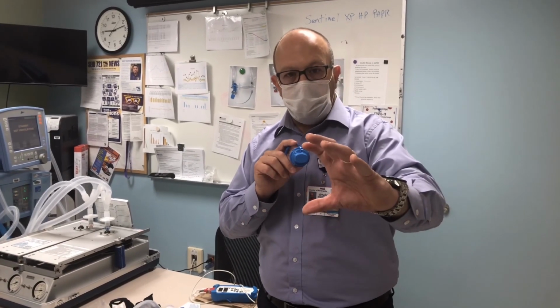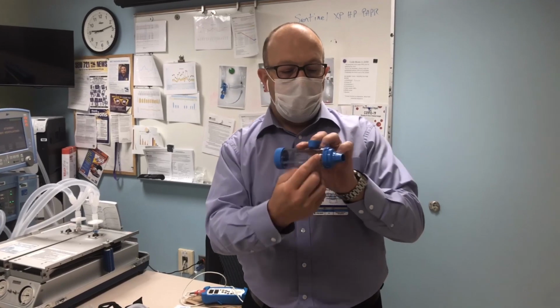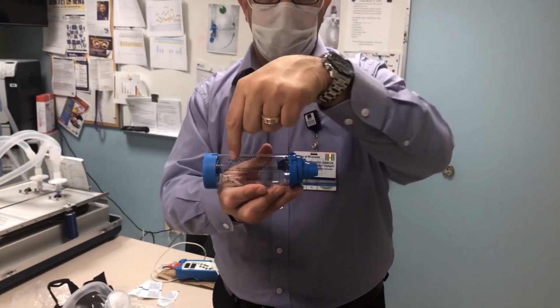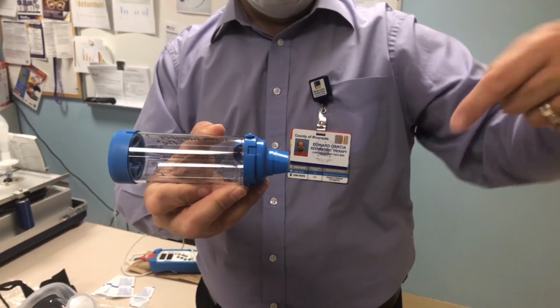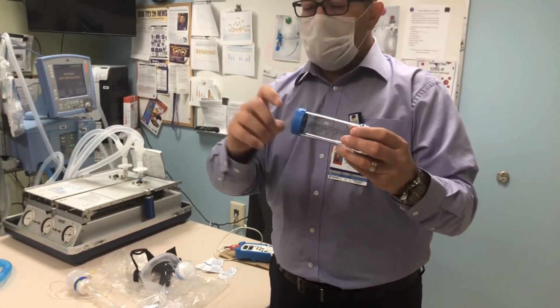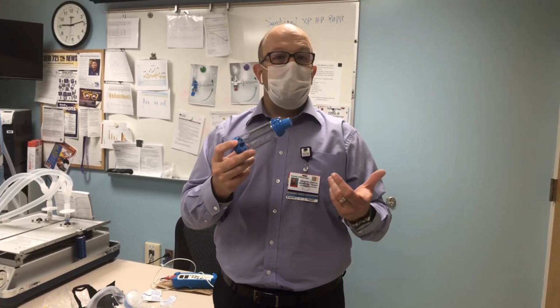After we give them their treatment, as we all know, this is a one-way valve here, and you can only inhale and not exhale. So when you spray the medication here, it's going to be suspended in this area, and once the patient breathes in, it's going to go this way; the patient's not going to be able to blow that way. After the treatment's given, you take the inhaler, you wipe it down, you go on to patient number 2, and you repeat the process.